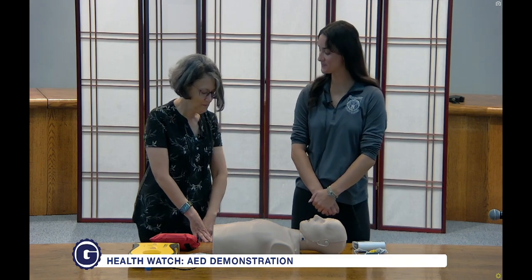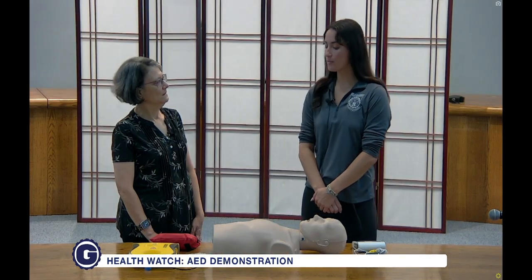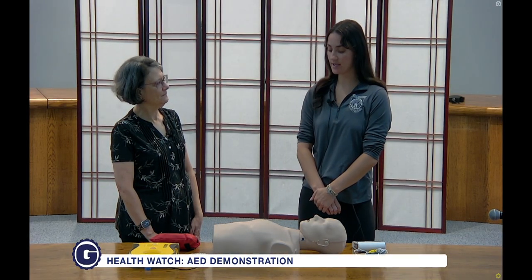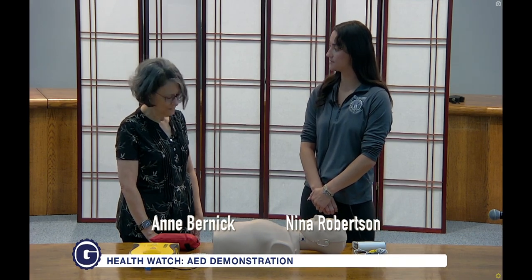So Nina, what is an AED? So an AED is an automated external defibrillator. The purpose of an AED is to regulate one's heart rhythm when they've suffered a cardiac arrest.